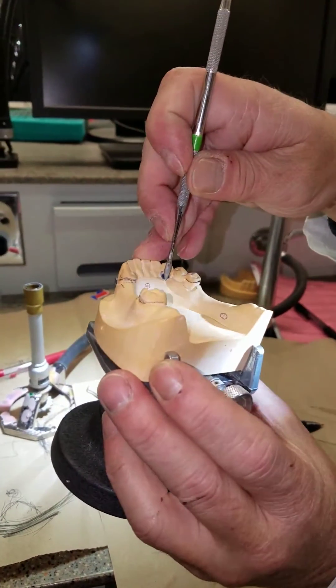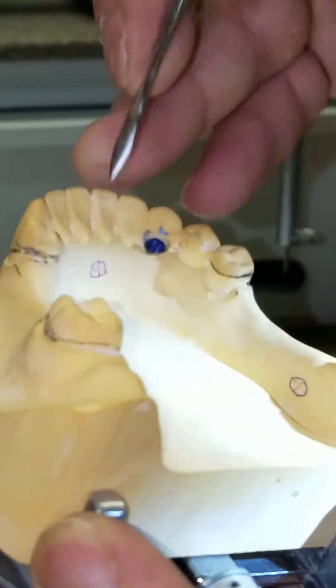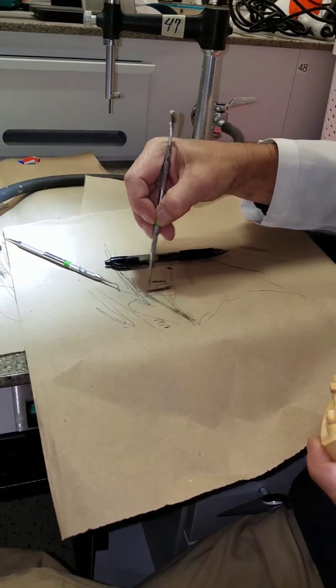That's pretty ugly but that's kind of the point — I still have an undercut there. But hopefully you'll start to appreciate: come straight up along the path of insertion because it'll give you the bulk here at the top to create your capture.